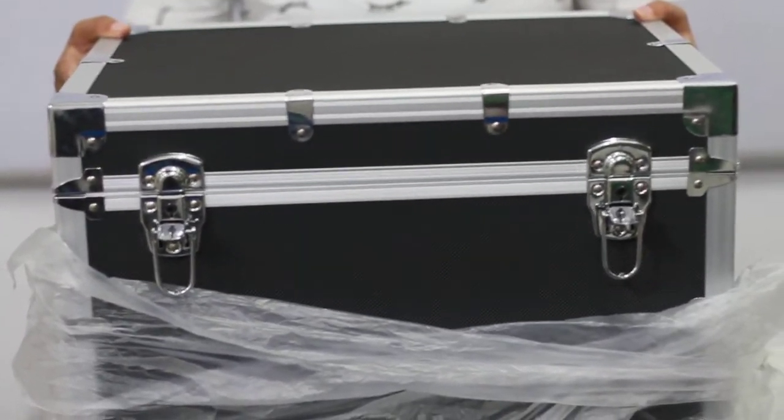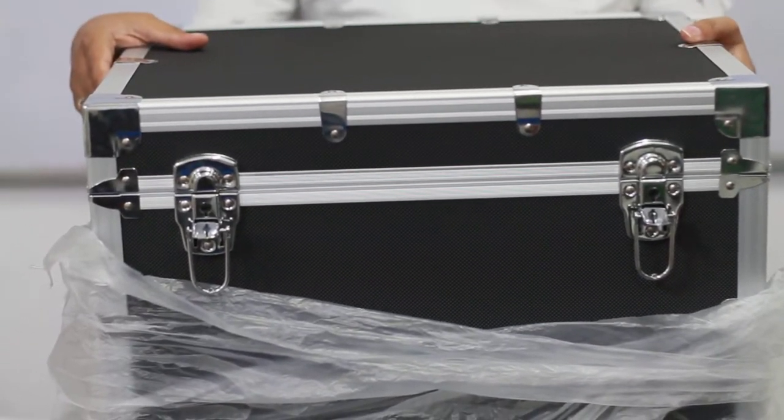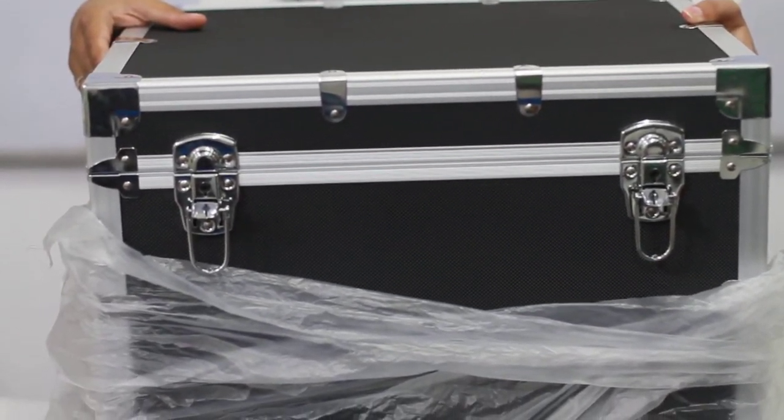Good morning all of you. We welcome you to the page of IMDSL India. This is our 15 watt proctology cum ENT diode laser.